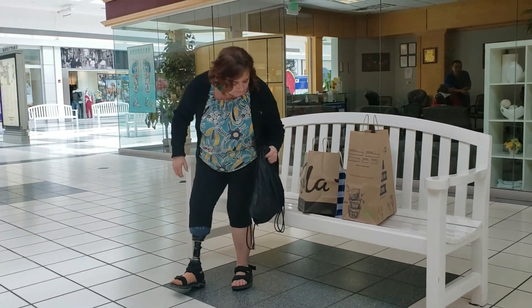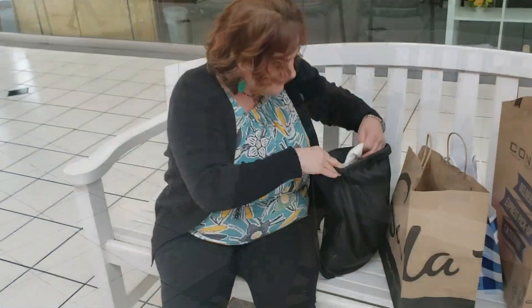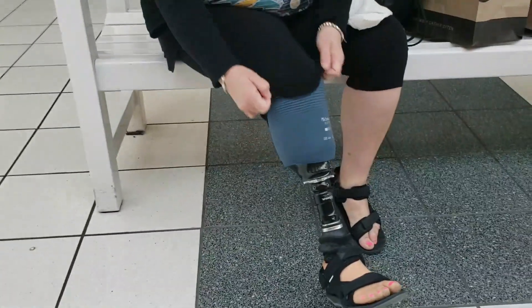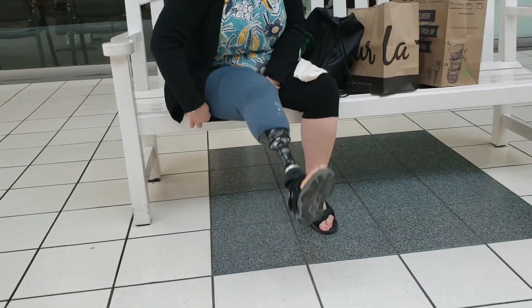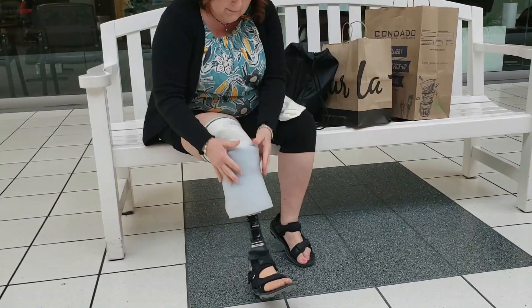We do shrink as the day goes on, so these socks become very important for maintenance. You're going to layer these up over each other. Now we're in a three-ply — the yellow band. We may very well in an hour or so need to add a single ply over top of the three-ply, and really it's all about layering up as you have more activity throughout the day.